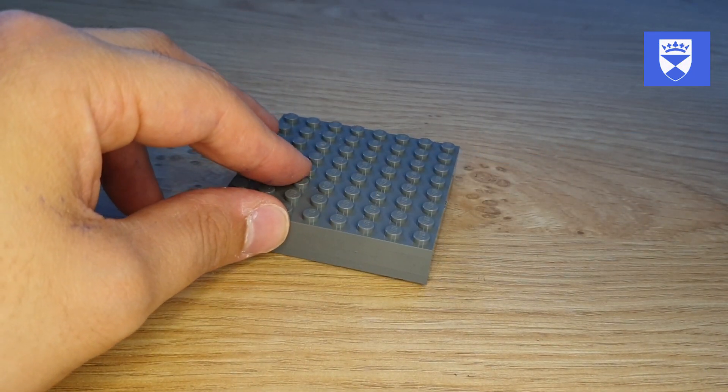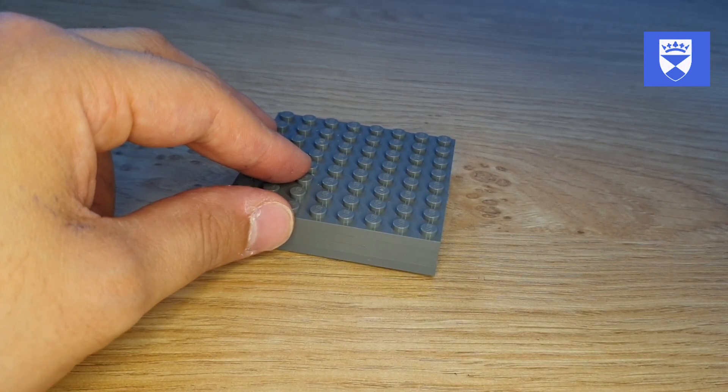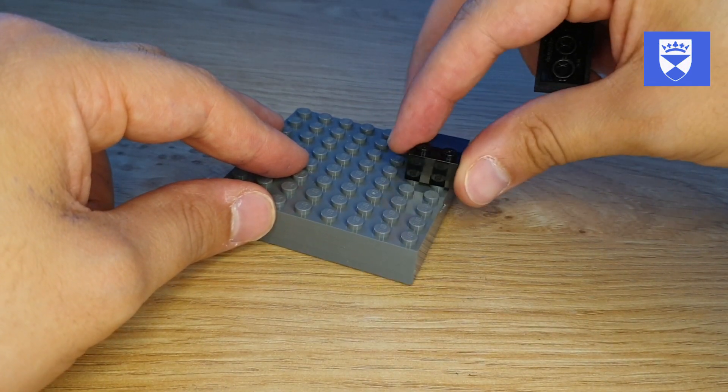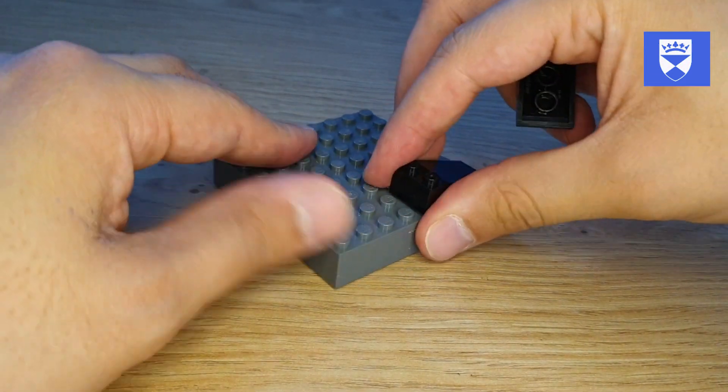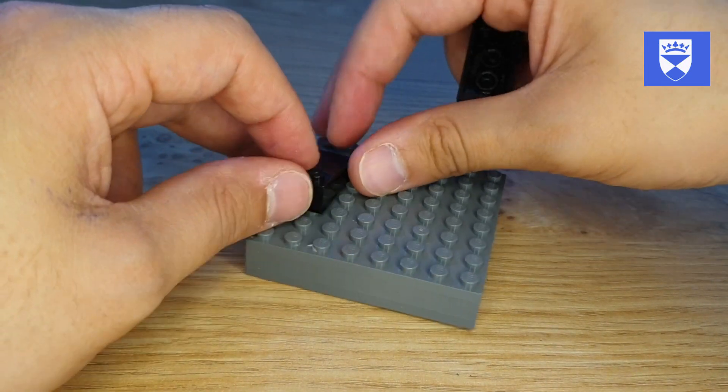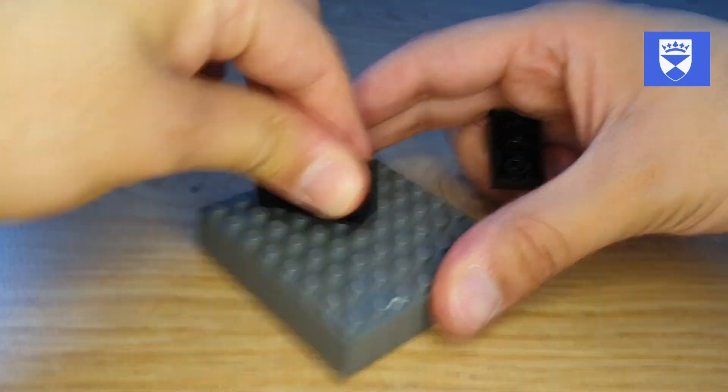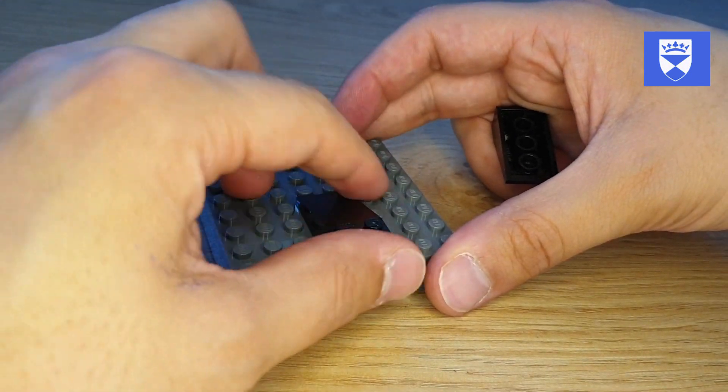This can be used to simulate several different areas of the oral environment simply by placing the blocks on different areas of the base plate. You can have them on the left side, you can have them on the right side. You can simulate anterior teeth as well.